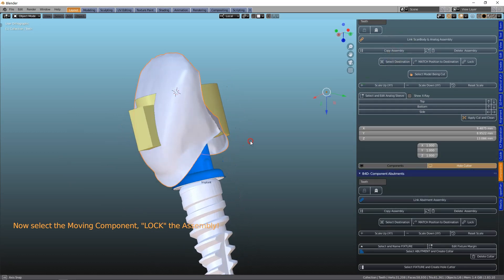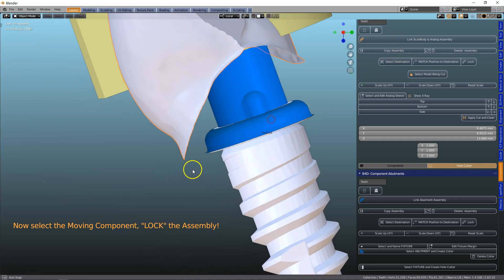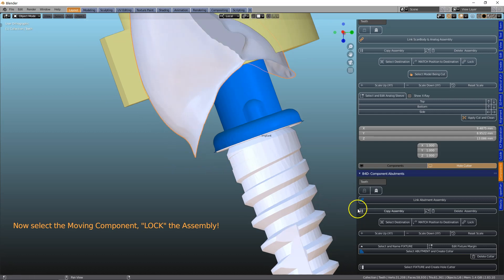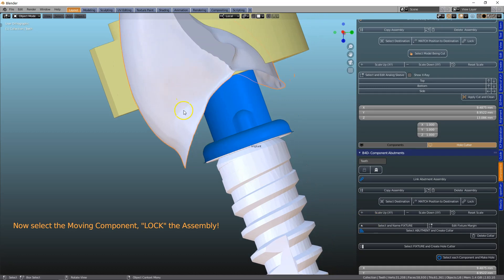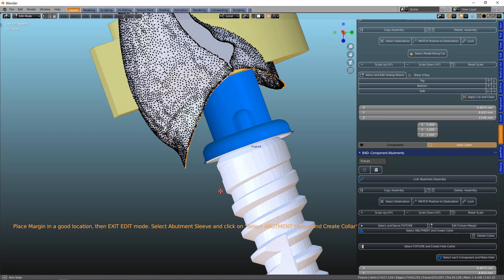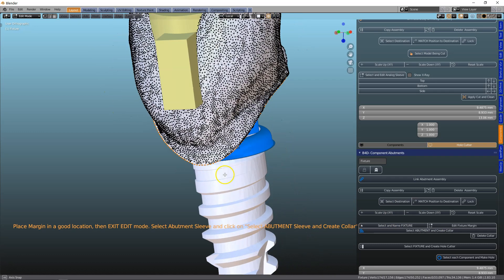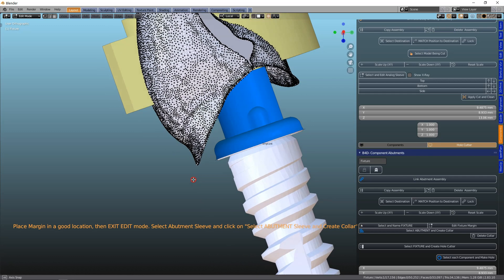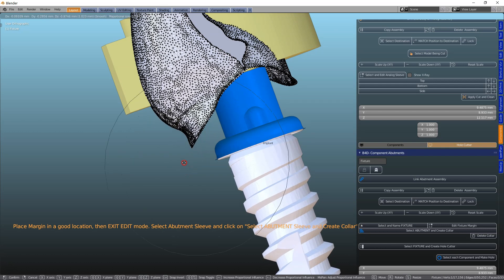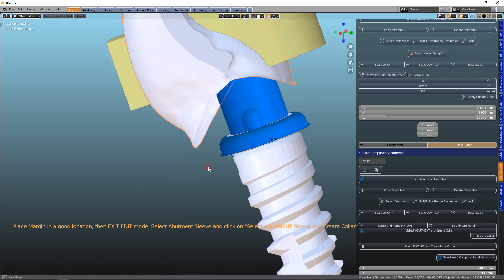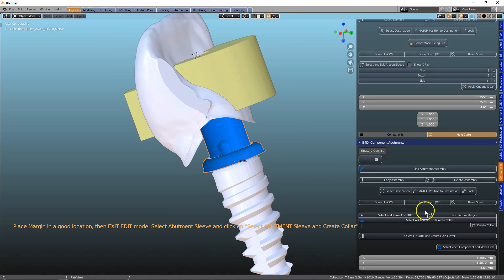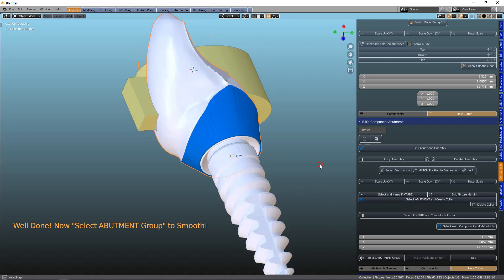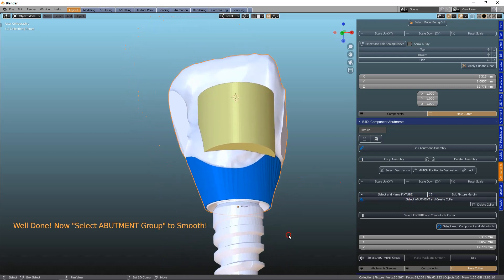So I'm going to take this one. Note how this is a little bit too perpendicular for my liking. So we're going to change that. I'm going to name this my fixture. And then we're going to edit this margin. Now we can pull this up a little bit. But ideally we just need to pull it up over here. So I'm going to use the G key and move this up just slightly like that. That should do the trick. And then we're going to select this one and we're going to make our collar. So that's joined up.